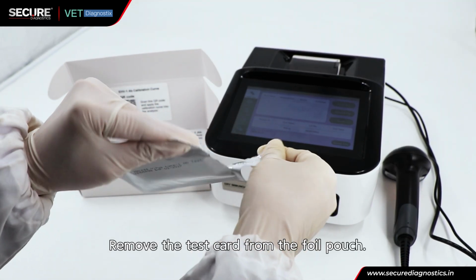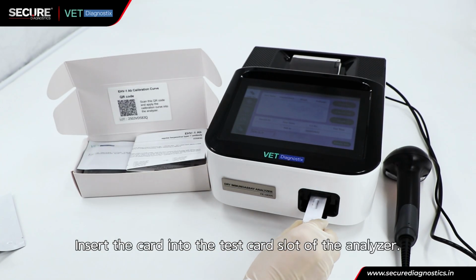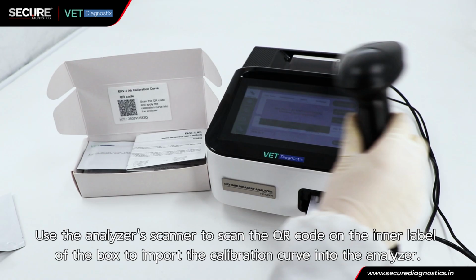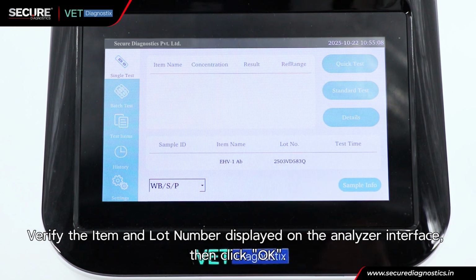Remove the test card from the foil pouch. Insert the card into the test card slot of the analyzer. Use the analyzer scanner to scan the QR code on the inner label of the box to import the calibration curve into the analyzer. Verify the item and lot number displayed on the analyzer interface, then click OK.